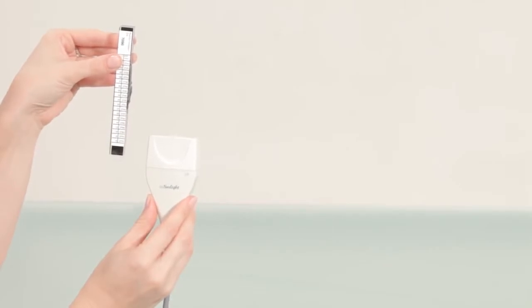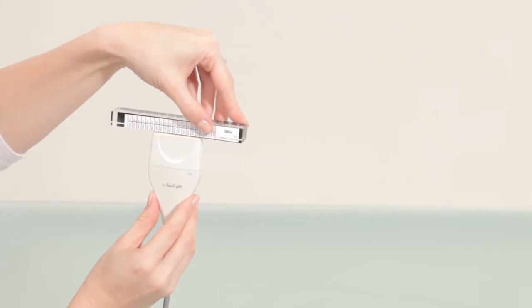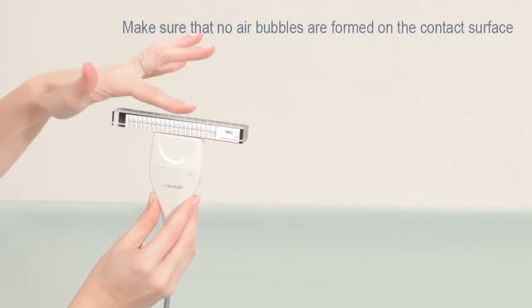Hold the probe facing upwards and mount the phantom on the probe. Look through the upper side of the phantom and make sure that no air bubbles are formed on the contact surface.